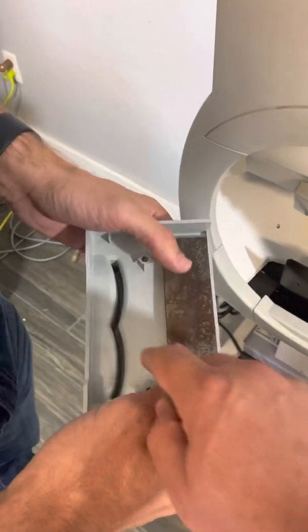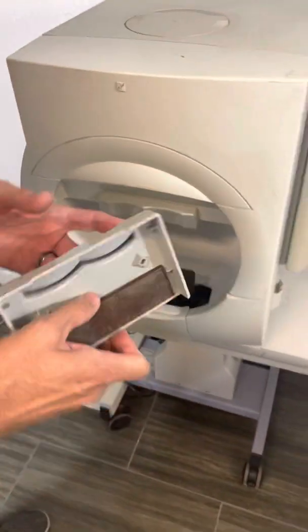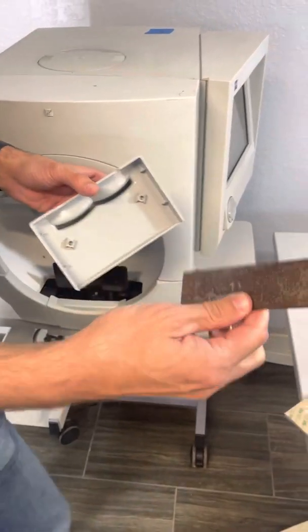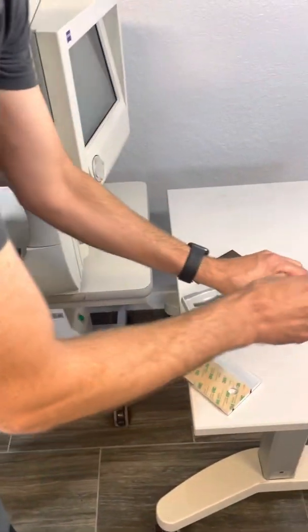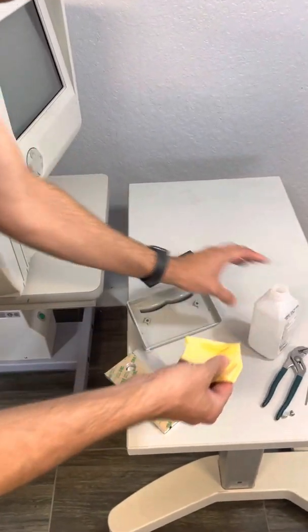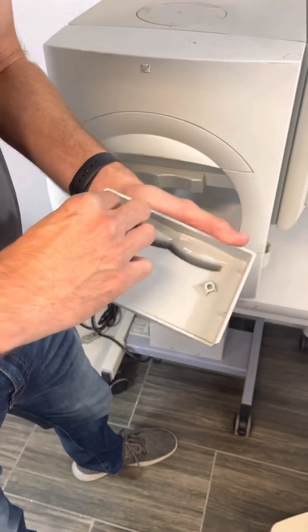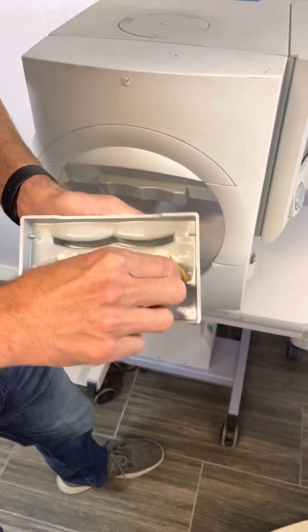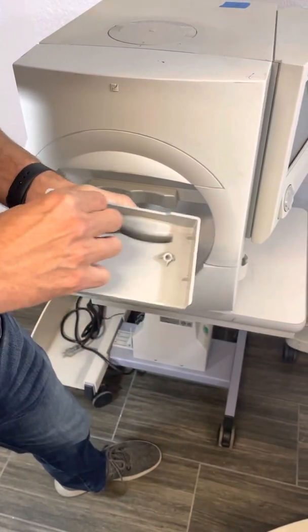Those parts taken off are actually the broken pieces from the chin rest. Here's the chin rest — you can get rid of this. Now take alcohol and clean the inside of it. It needs to be completely clean: no dust, no finger oils, no dirt. Clean every spot inside.